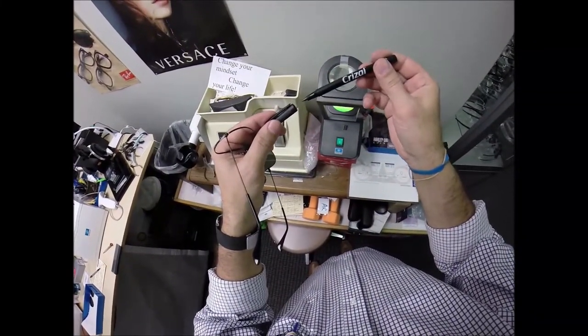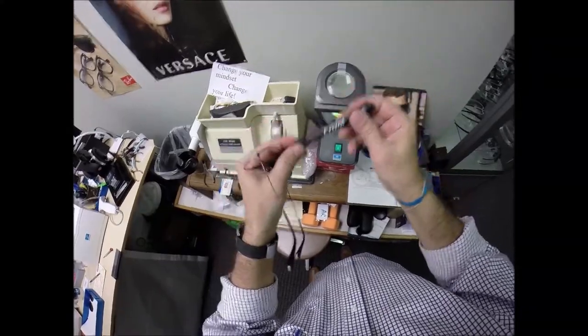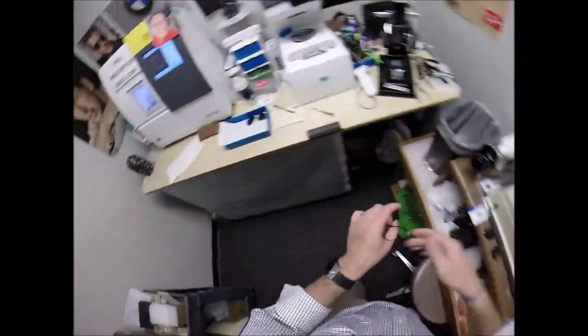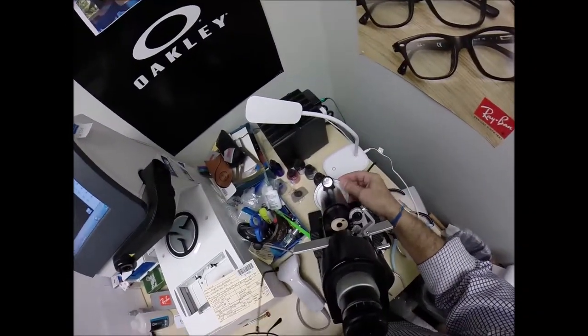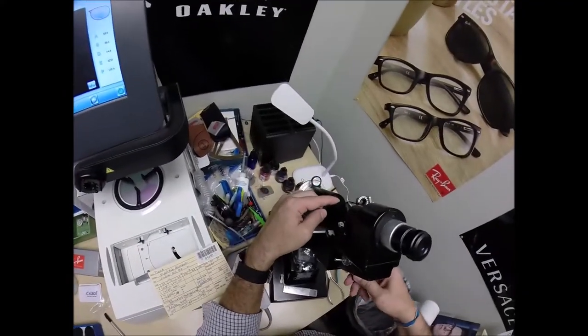If I'm not, I can slow down and make this really boring. Oh, let me yawn first. What am I going to say? You say it for me. Okay. So, back to work. Put the axis wheel on 110. Why? Because it says it right there. Put it in over that black dot.